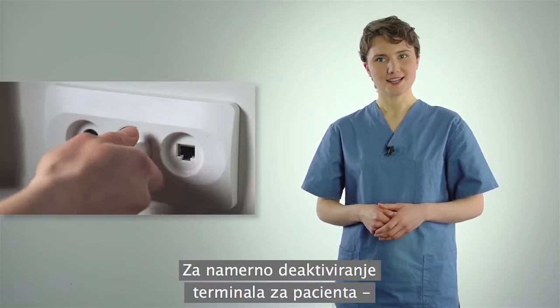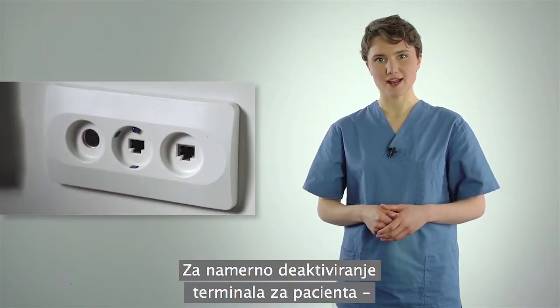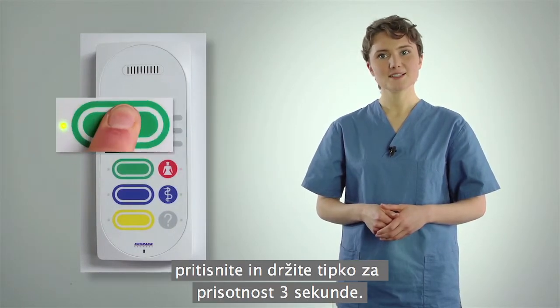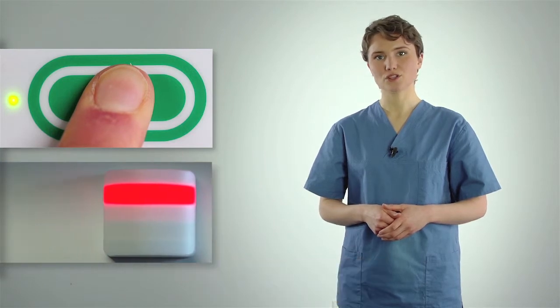To intentionally deactivate a patient terminal, for example if the bed is no longer occupied, press and hold the presence button for three seconds.